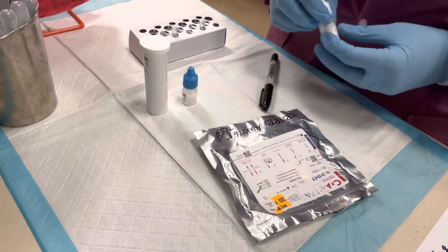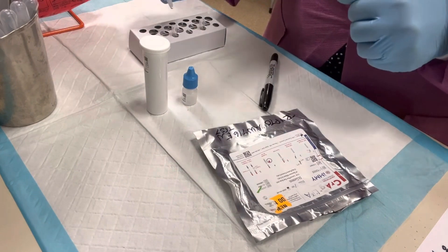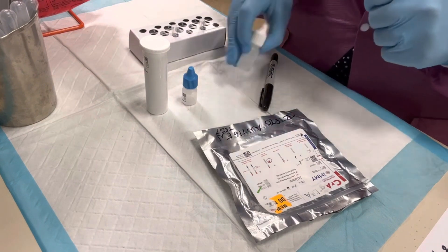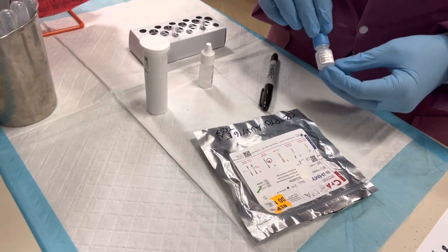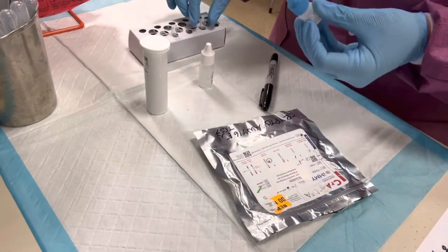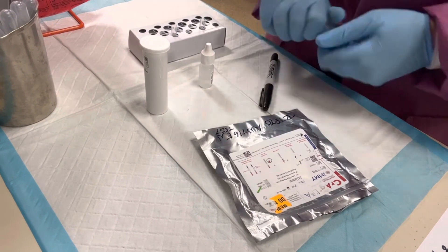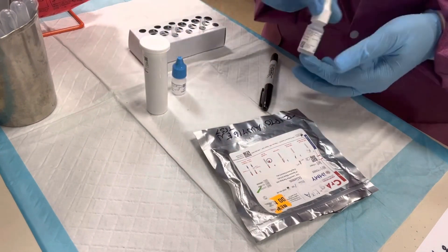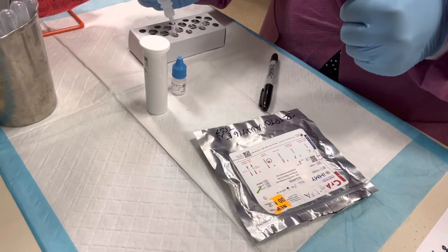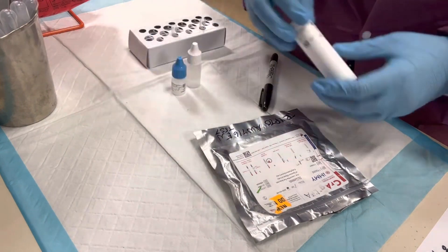The procedure says to add one drop, or 40 microliters, of diluent — so I'm going to do one drop in each of these. Then we add one drop, or 40 microliters, of the specimen. Since I don't have a positive patient, I'm using the positive control. I actually put two drops in to make sure it reaches 40 microliters. For the negative control, I'm just going to add extra diluent.